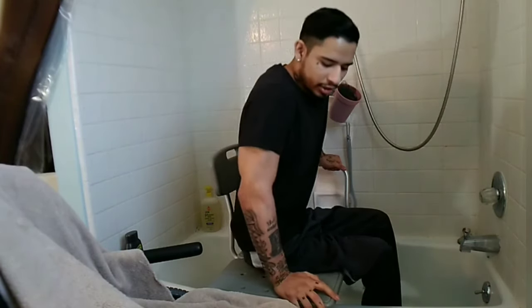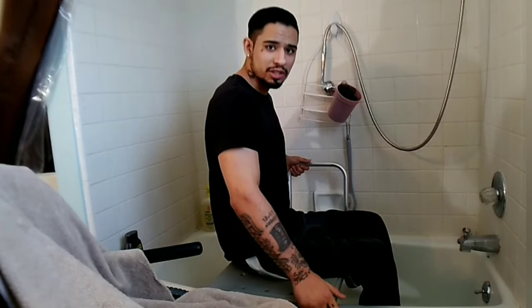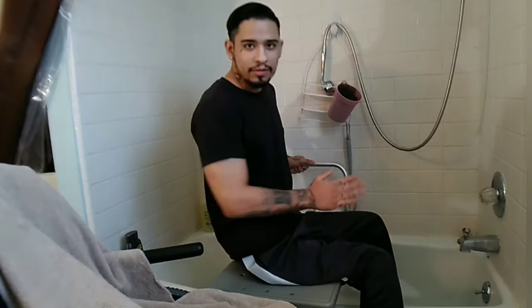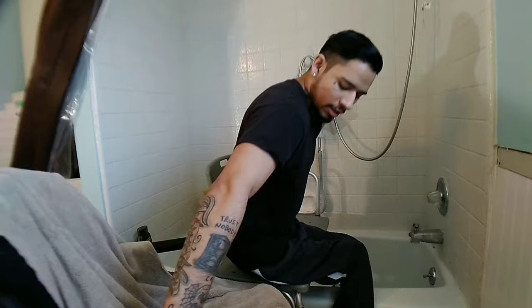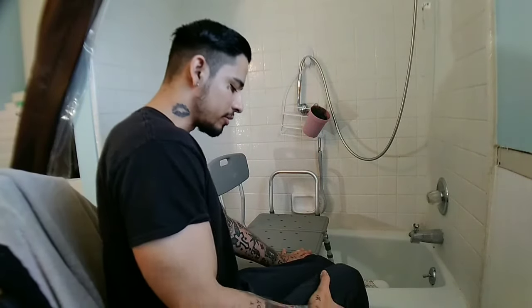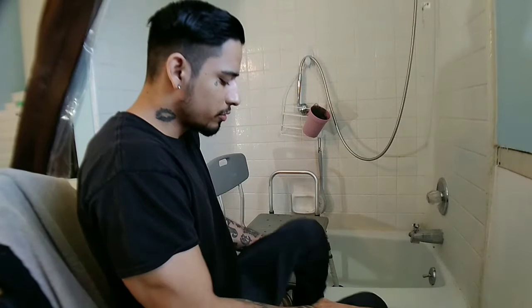To transfer back, you hold on to the railing. For me personally, it helps to have my arm wrapped around the seat. Then I just lift my leg over — I still have this one right there. Then I have my hand on the seat or on the armrest, doesn't matter — everybody has their own preference. Have your other hand on the seat, lift up, scoot over, fix your legs, put them on the footrest, then grab the other leg and pull it over just like this.